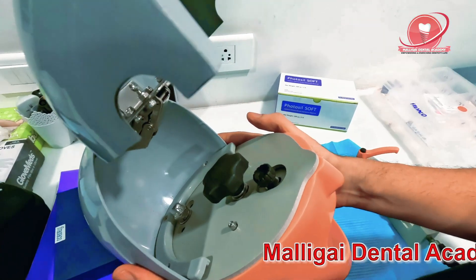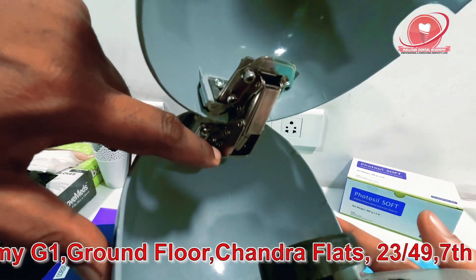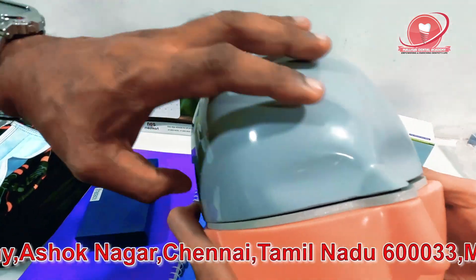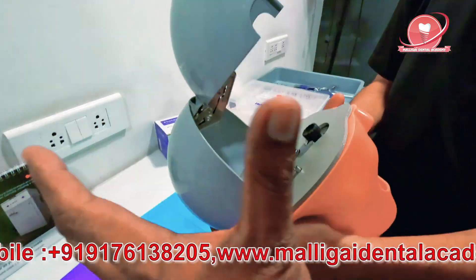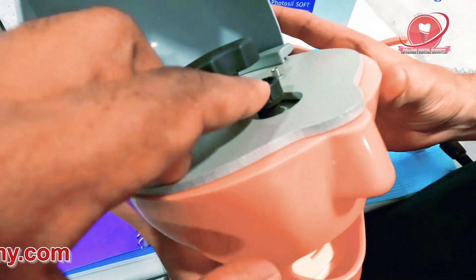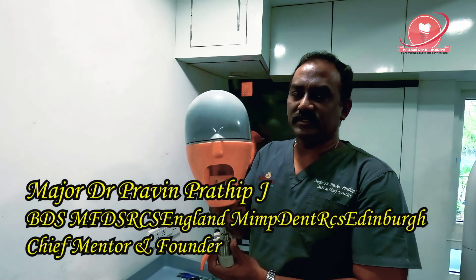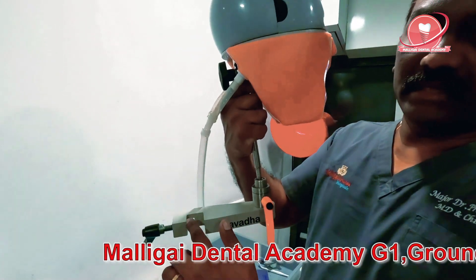Now I'm going to show you how it looks inside. Inside there is a spring-type clip. There are many different kinds of mannequins available, and this is a clip type where you just hold it like this. To open, just lift it up — it's a simple operation. From the side you can see — inside we have three screws: the bigger metal one, the middle one, and the front one. Basically there is a jaw connected to this. As you can see, I am holding my little mannequin head from Navada — you can see their branding right here.